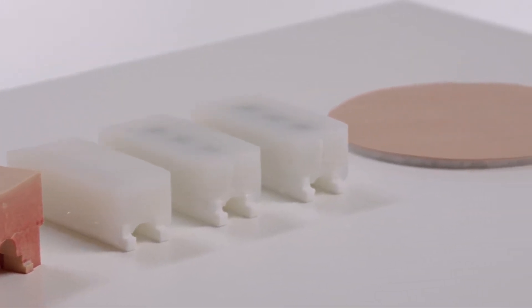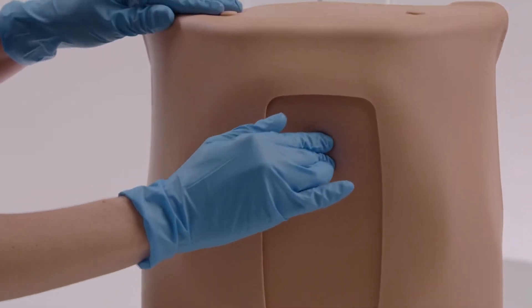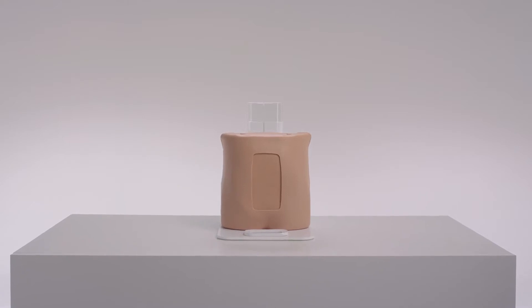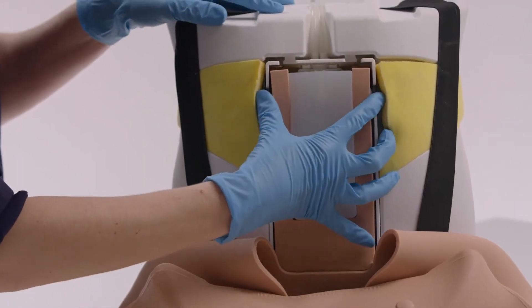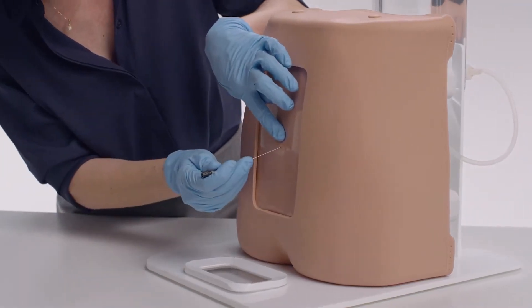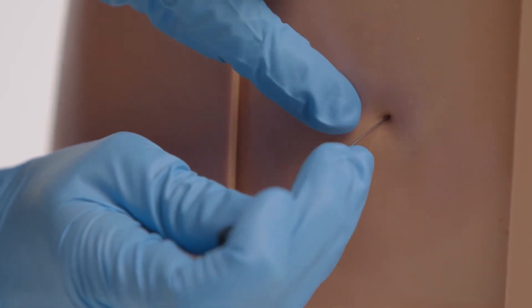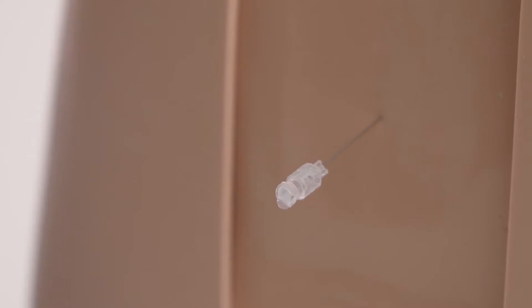The variable inserts feature palpable sacrum and vertebrae L2-5. The Lumbar Puncture Model has been designed for early years' training. The replaceable tissue inserts can be added to the durable spine and dura. The tissue insert accurately recreates the feel of puncturing the dura, collection, and measurement of CSF.